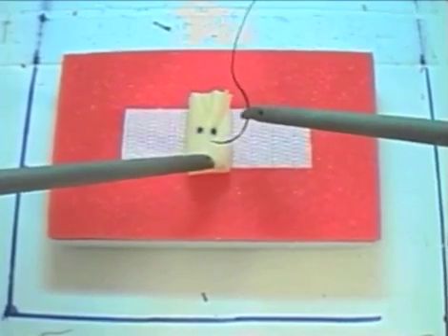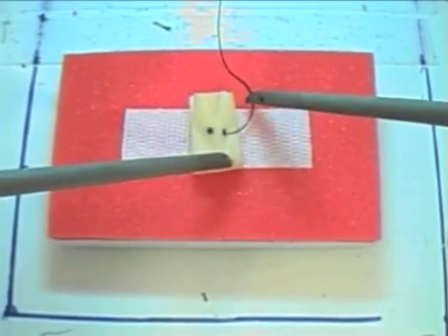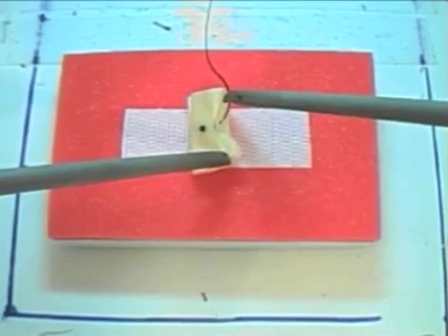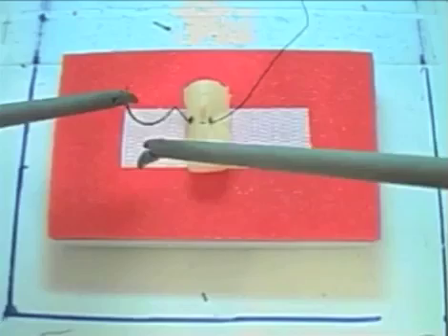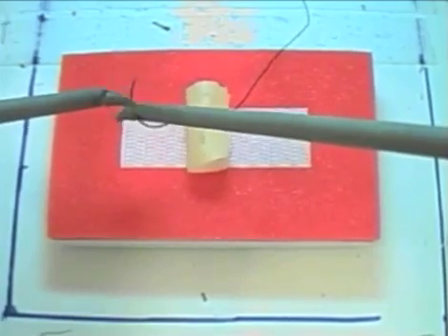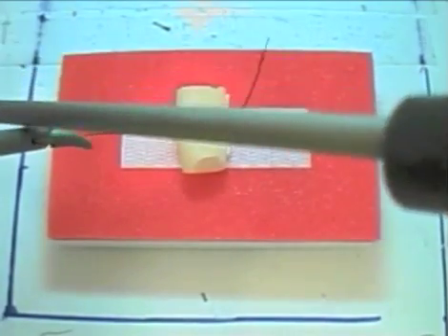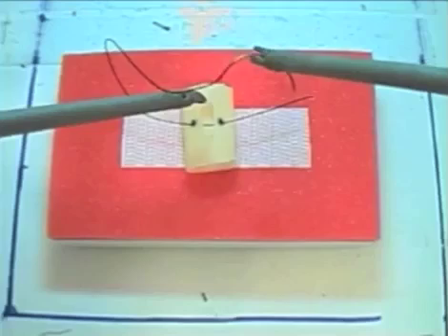But in this case, the knot will be tied entirely within the box. Pull the stitch through, leaving a relatively short tail as this will be easier to work with.